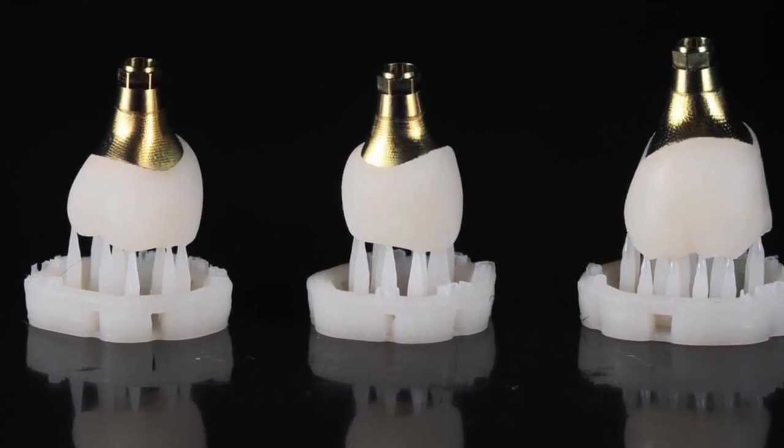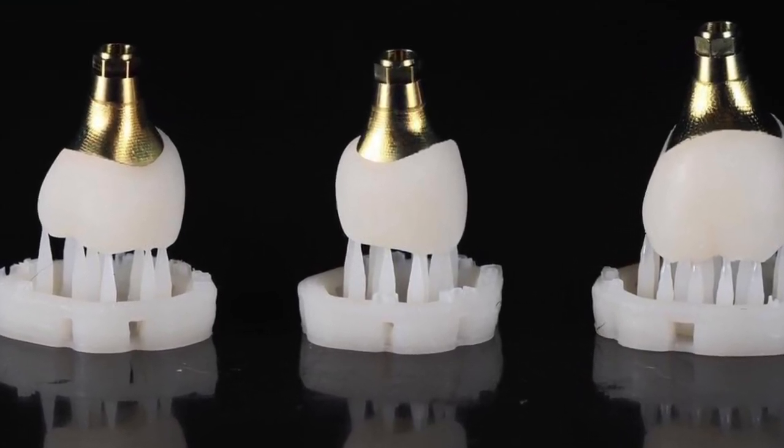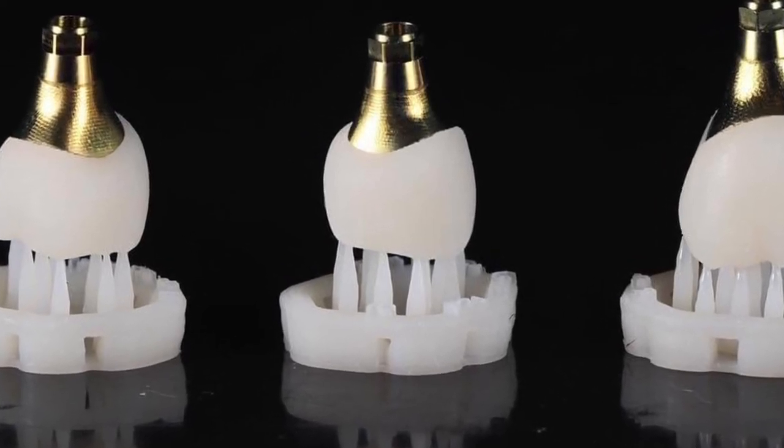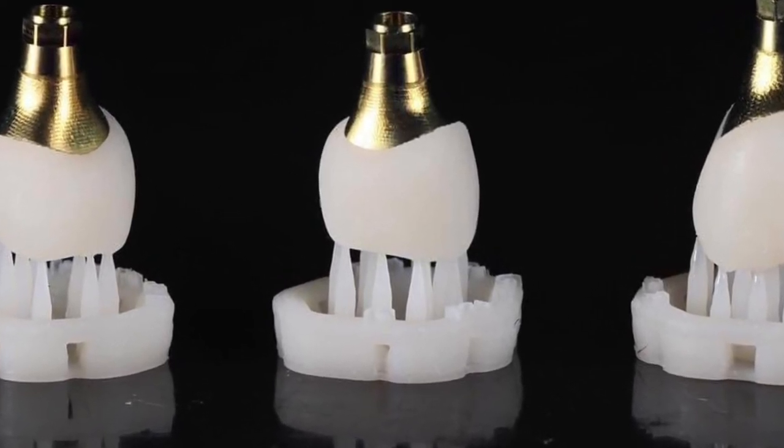Many people ask, why on earth would you 3D print a definitive restoration for an implant? Well, there's a lot of good reasons out there in the literature. One of them is the dampening effect that resin polymers have on the occlusion and transmitted forces to the bone.